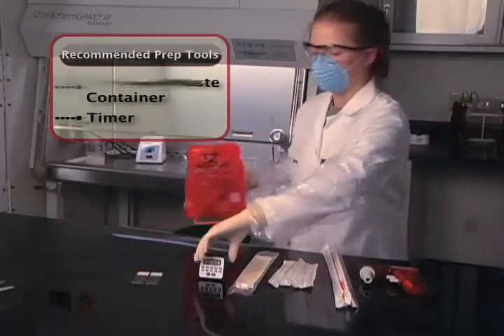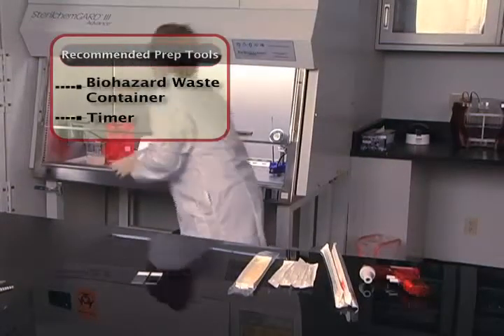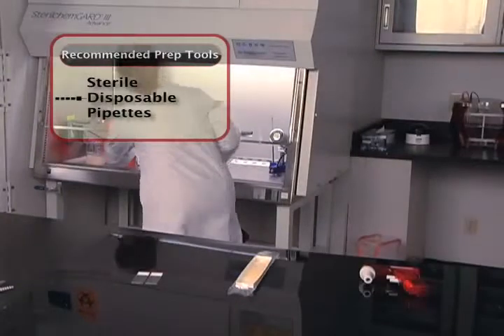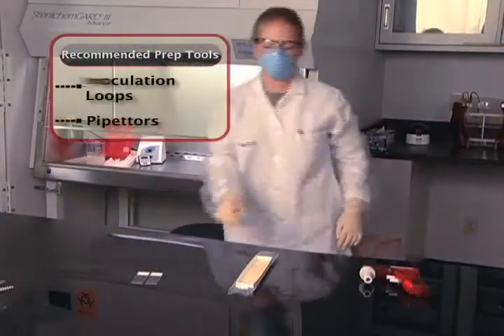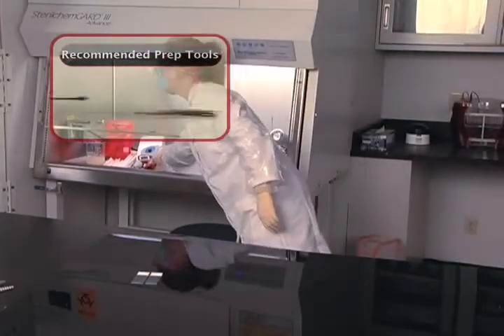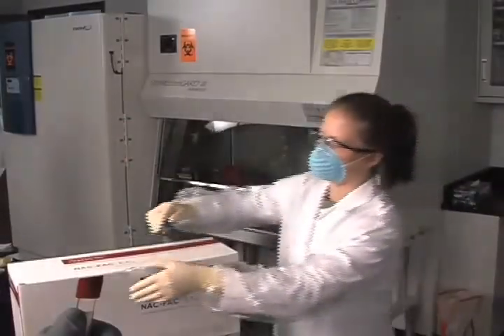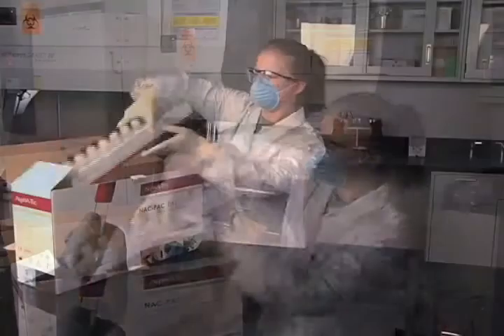It is important before processing respiratory specimens for AFB that all the necessary equipment, reagents, and supplies required to perform the procedure are ready for use and easily accessible. This ensures that the processing will be carried out properly and efficiently while protecting both the patient specimen and the laboratory technologist.